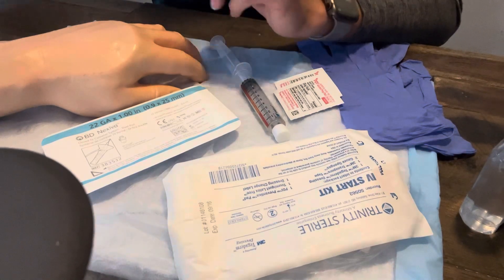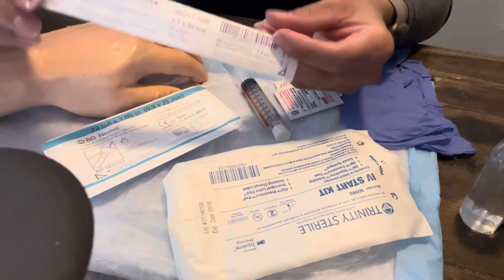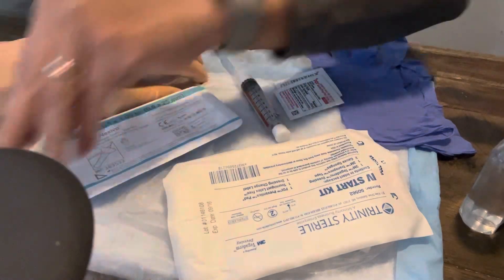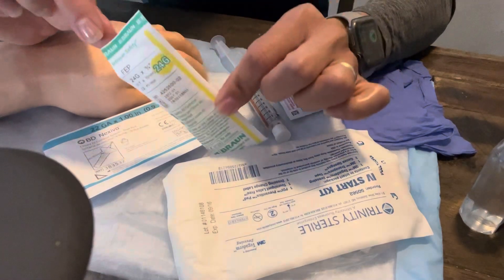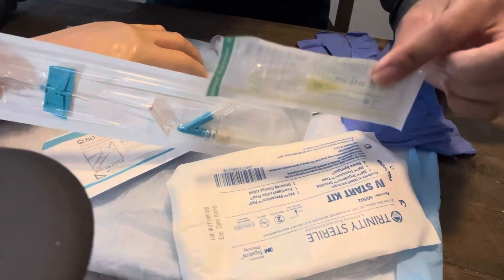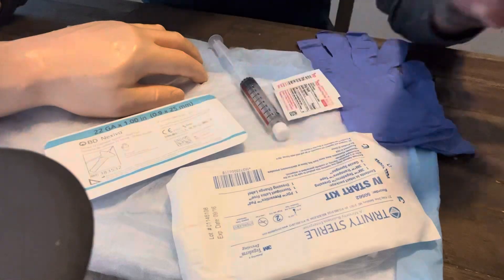There are also different catheter brands. There's the auto guard, which I'll go more in depth on how to insert. There's this brand here — a little different. Basically, if you were to combine this and this, you get this. It's like two in one. These are the most updated ones we have at my hospital.